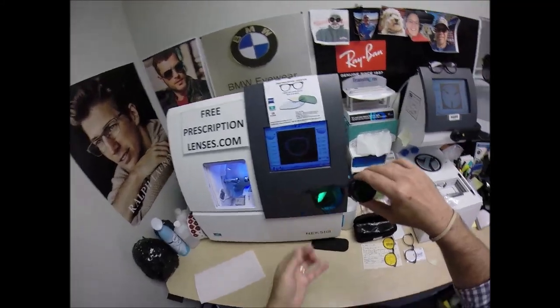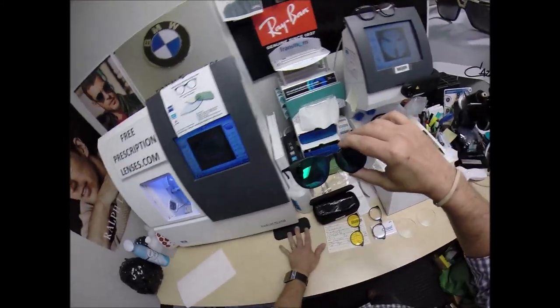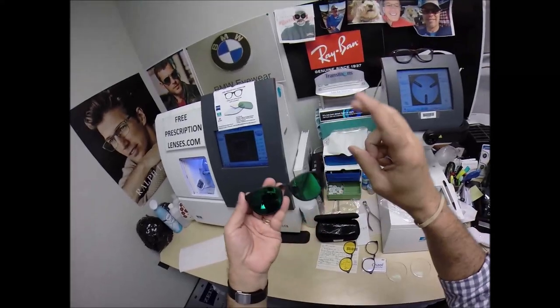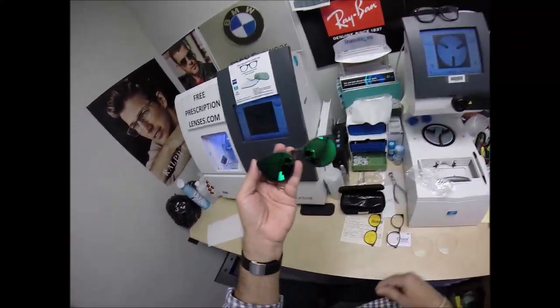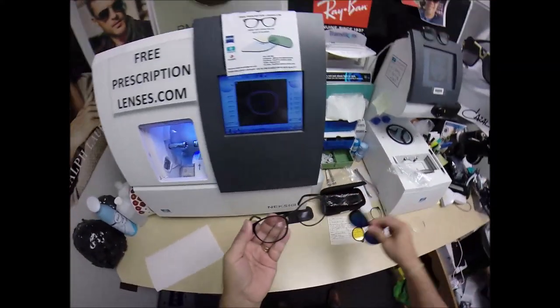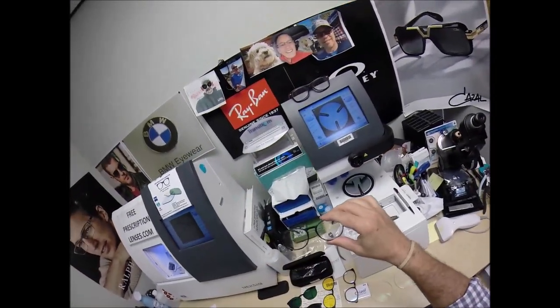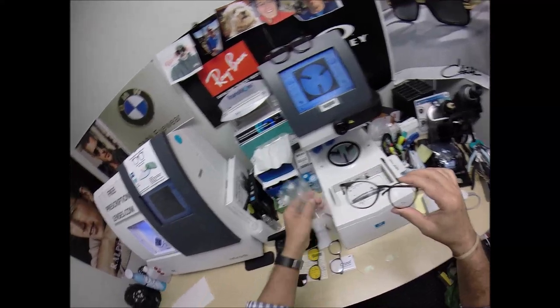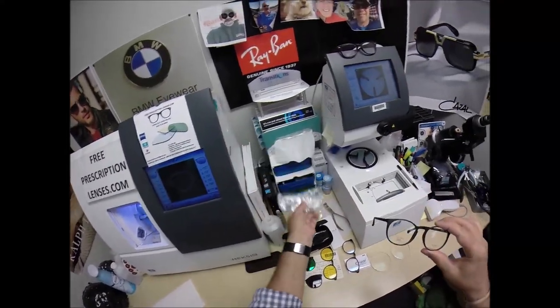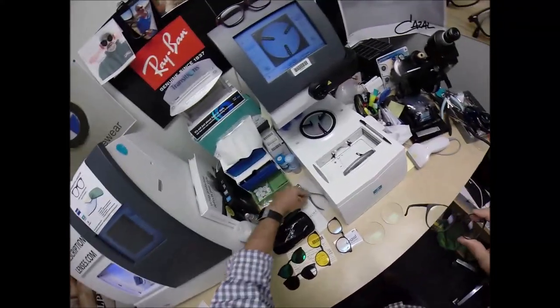I hate using air quotes, but it's like saying it's raining outside, but if you have an umbrella, it's going to feel dry. You know, it's not exactly a 100% true statement. But anyway, that's it. Let me go ahead. And again, I'm going to wrap everything back up as it came and just recycle what you don't use.